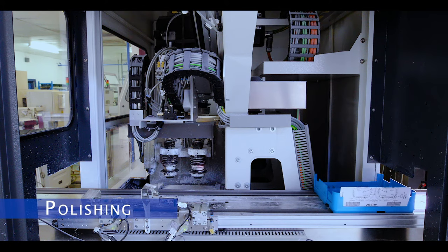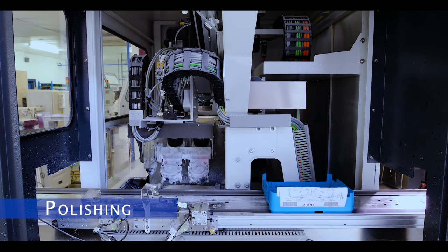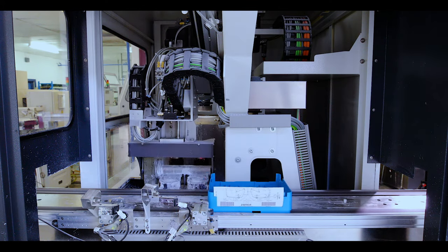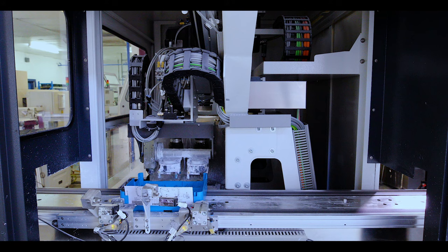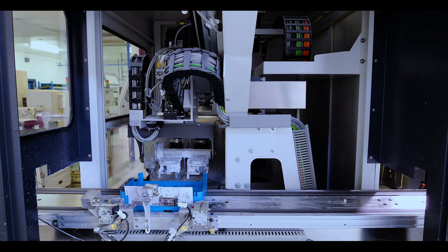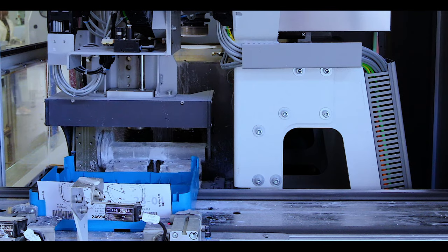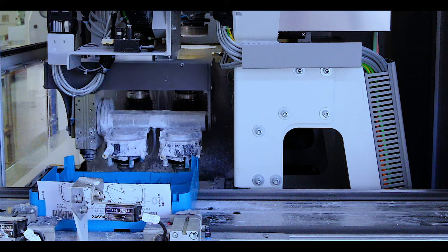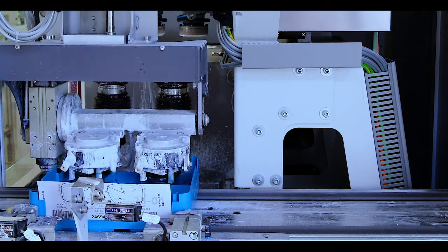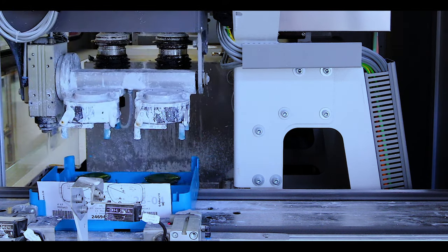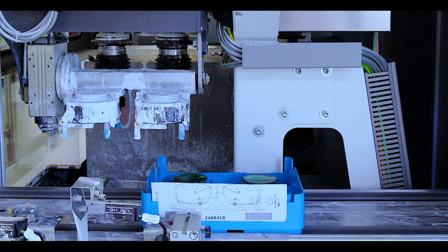When the lens prescription grinding is complete, the lenses are automatically polished on a state-of-the-art German lens polishing machine. Using high-speed polishing pads and polishing liquids, the lenses are polished to be optically clear with no visible scratches.